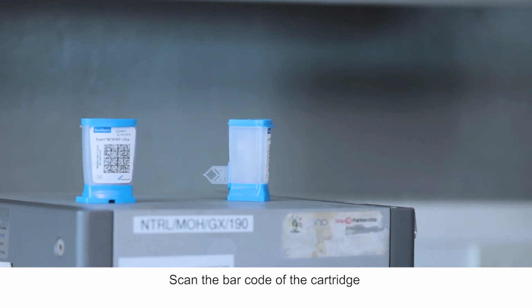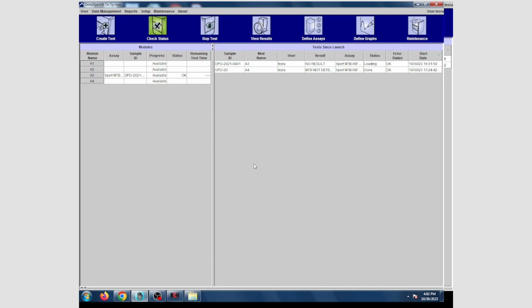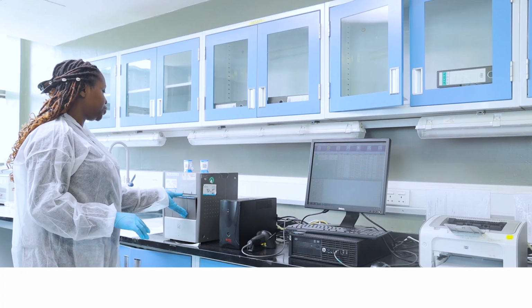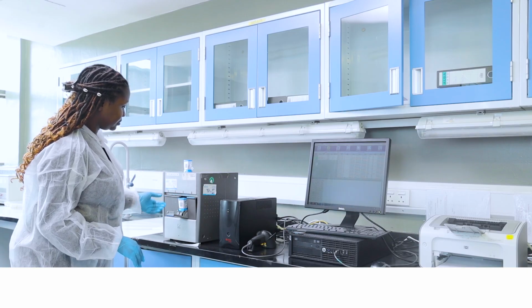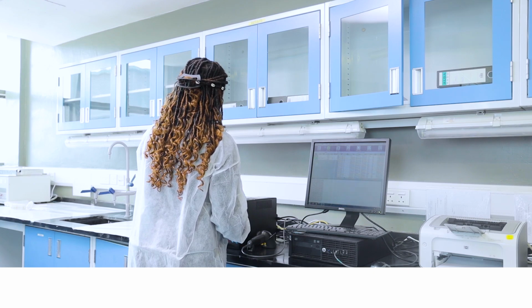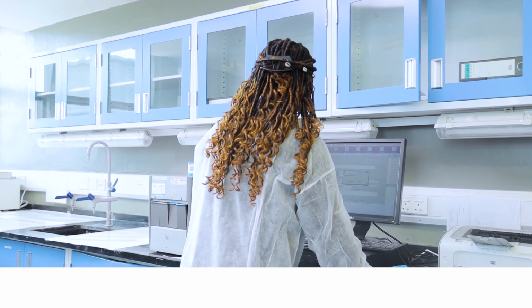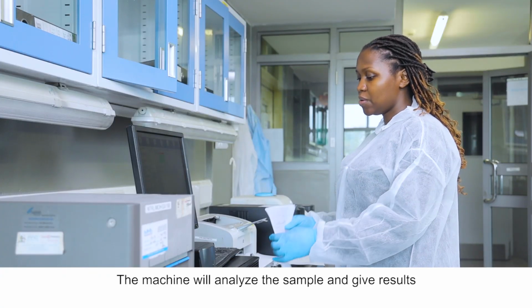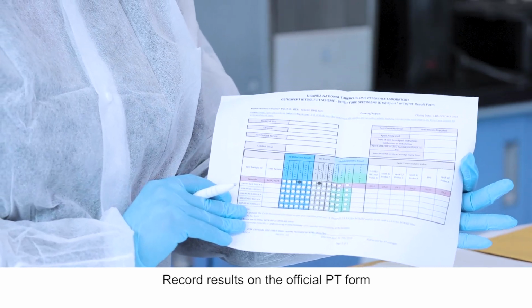Scan the barcode of the cartridge. The machine will analyze the sample and give results. Record the result on the official PT form.